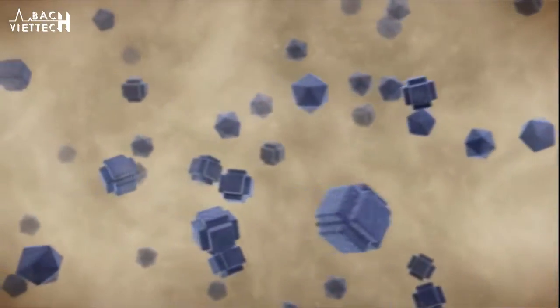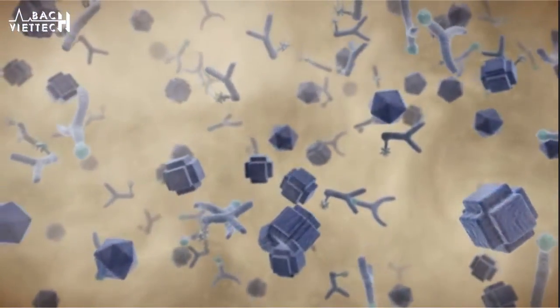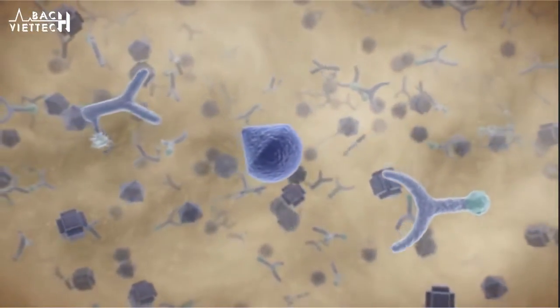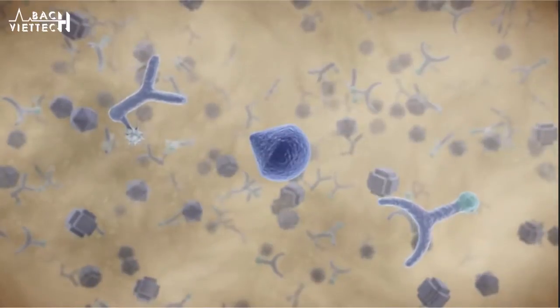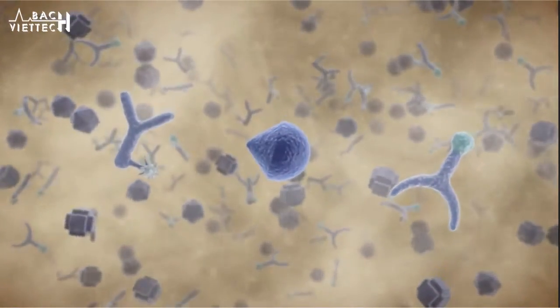Disposable tips are used to pipette a patient sample into a disposable cup. Incubation with two antibodies begins. The first antibody is labeled with biotin, the second is labeled with ruthenium. Both are highly specific to binding sites on the target antigen.